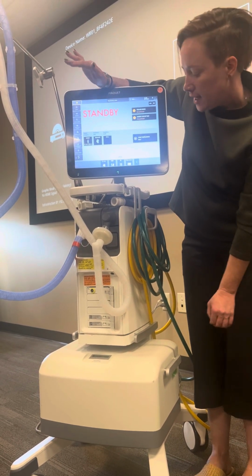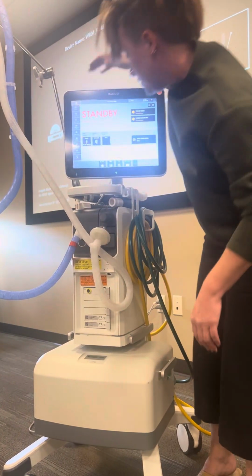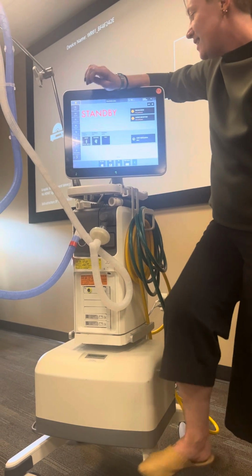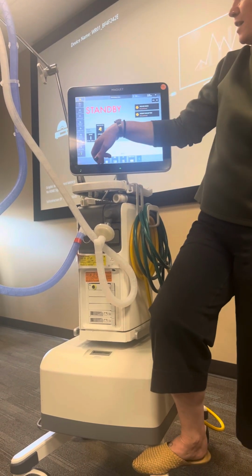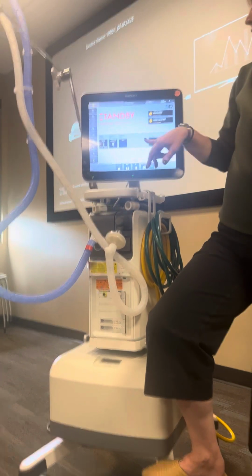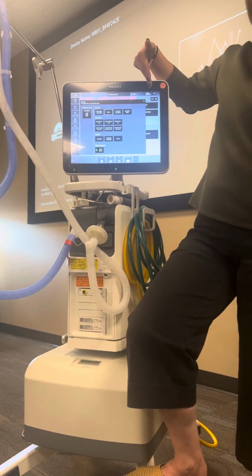Your neonatal circuits require an extra connection point in one of these modules that you don't have. So that answers that. You're just going to be venting in peds. You're going to make sure that your ventilator type is set to invasive ventilation. And then we're going to go to our ventilator mode, where you can see we had all those options.